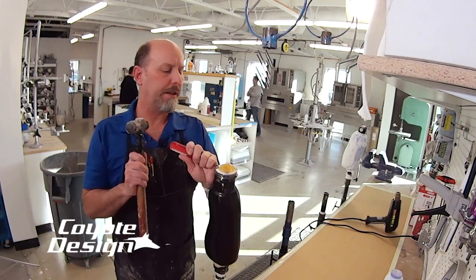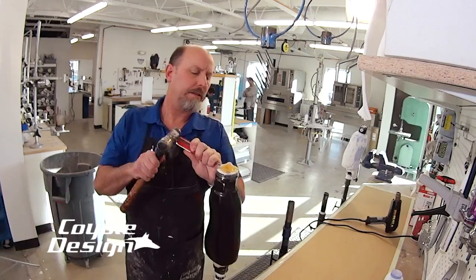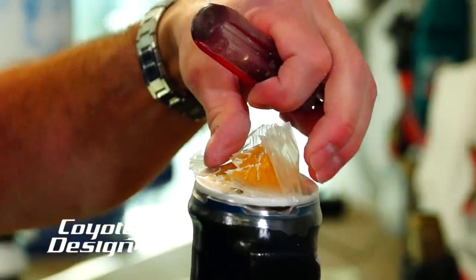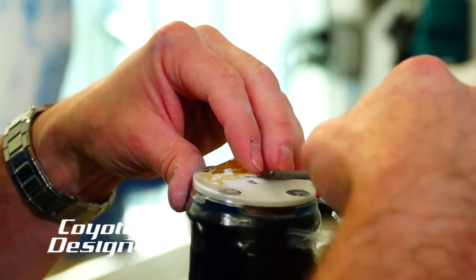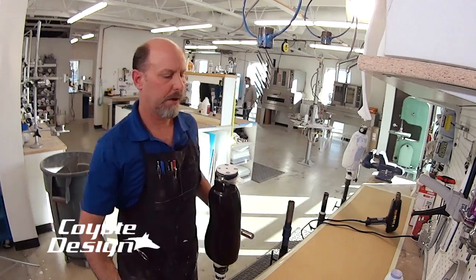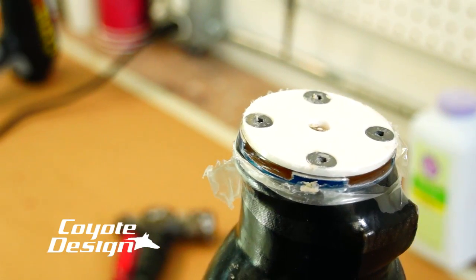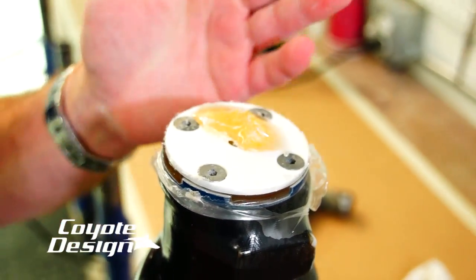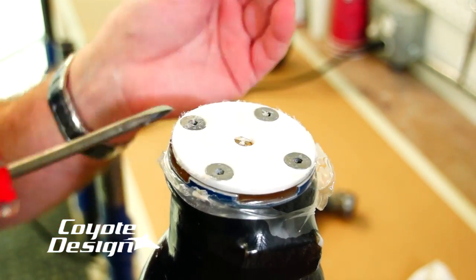But this isn't going to hurt anything. I'm going to take my hammer here. That's probably not the best thing to do, but if you're in a hurry it'll work. It won't hurt your layup, but it is better to take it to a sander. The reason why I could take a screwdriver and do that is because it wasn't very thick — it was just straight resin right on top of that plastic plate. That's why I was able to hit that with a hammer and a screwdriver and just tink it off of there.